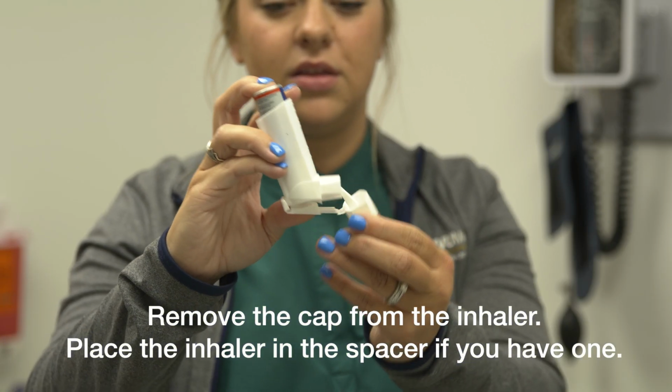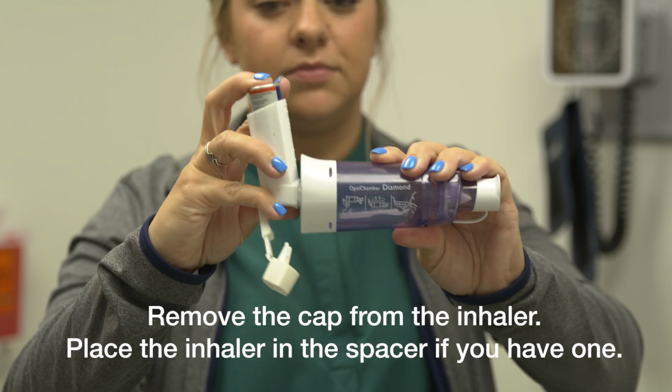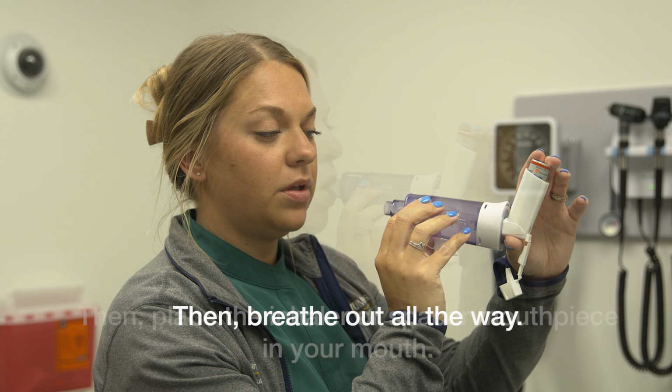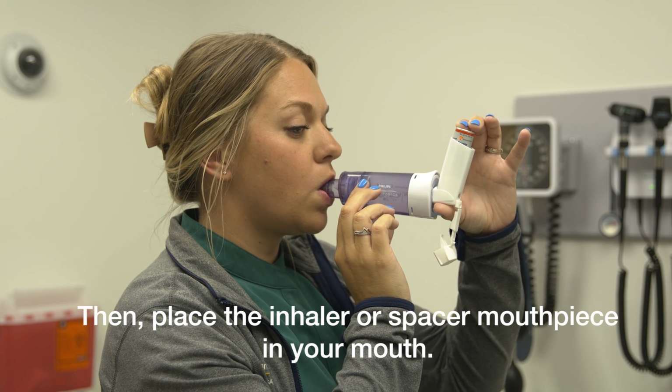First, remove the cap from the inhaler. Place the inhaler in the spacer if you have one. Then breathe out all the way. Then place the inhaler or spacer mouthpiece in your mouth.